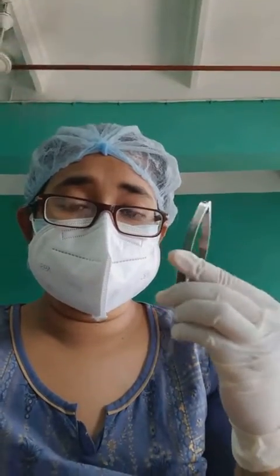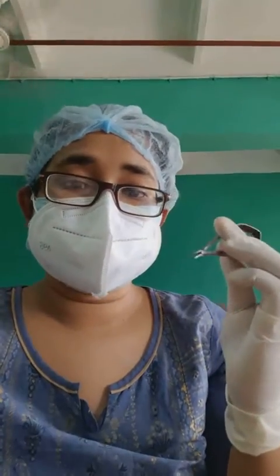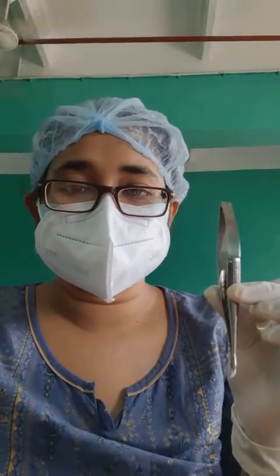We tie the flaps with suture — we use 6-0 vicryl suture. For suturing, we use this instrument known as the Barraquer needle holder. You may have seen this instrument in your cataract class as well.